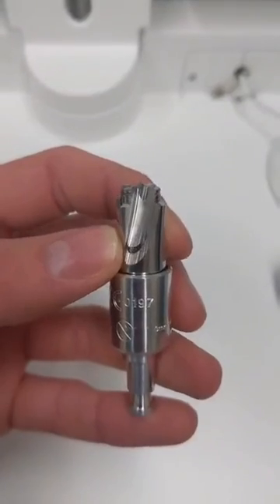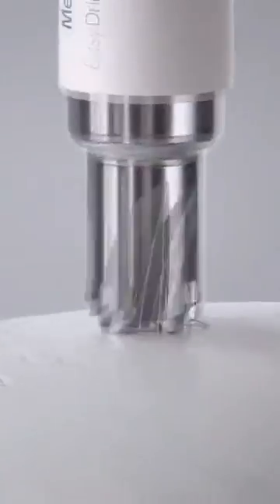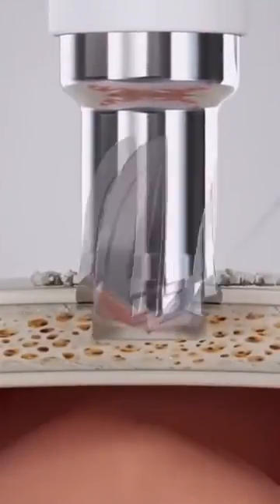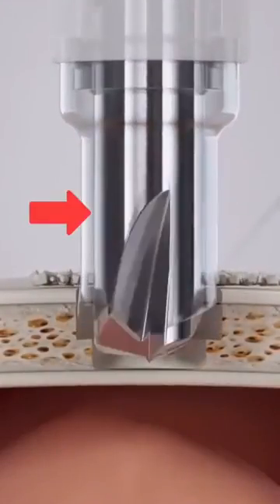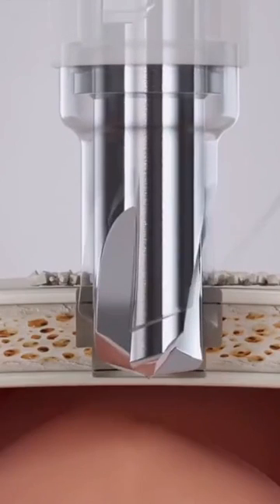Let's see how this issue is solved. Notice the cranial perforator has two moving pieces: an inner and an outer portion. The outer portion moves freely, while the inner portion is locked behind a spring-loaded mechanism. The drill bit only engages with downward pressure on the skull, and then is released when that pressure is no longer there.